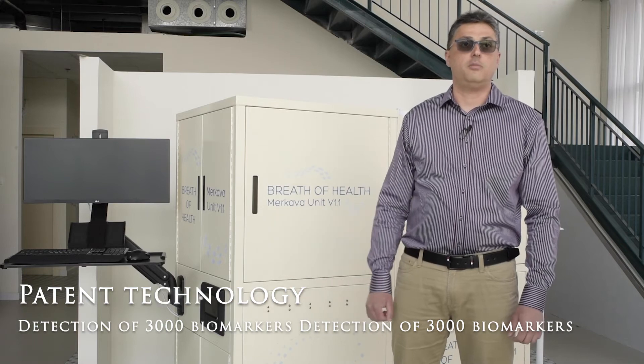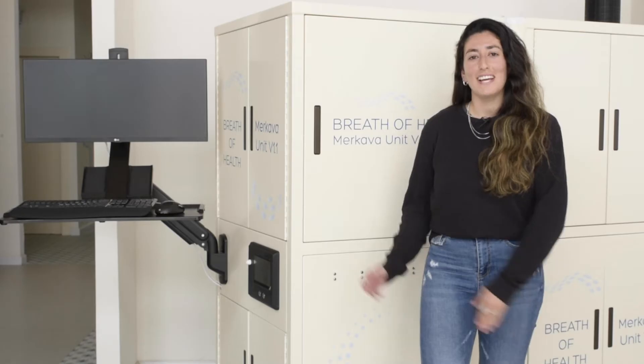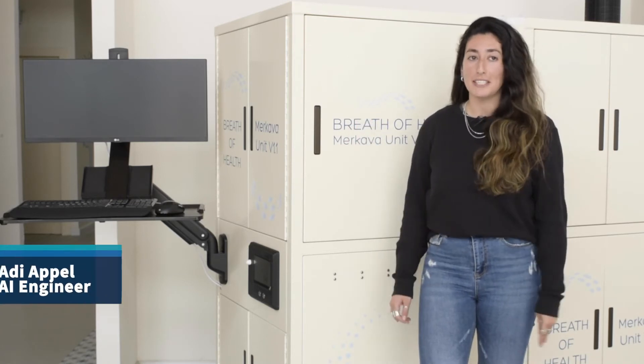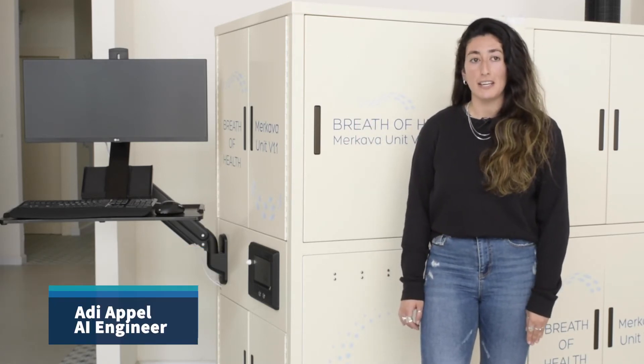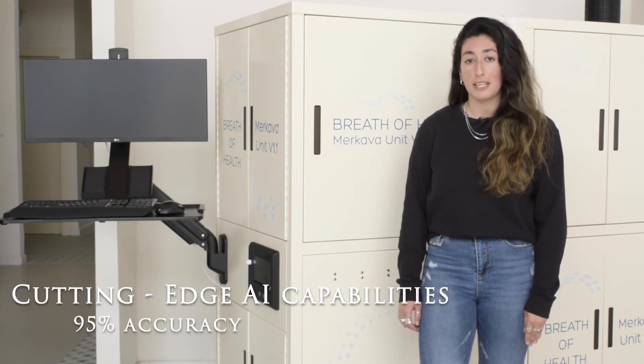Our technology is based on higher measurements of human breath reviewing up to 3,000 biomarkers. The Merkava platform generates cutting-edge AI capabilities which allows us to recognize and predict COVID-19 above 95% accuracy.